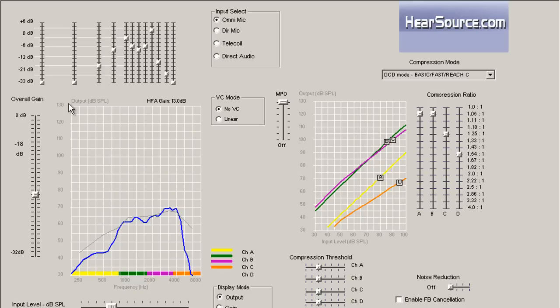We try to decipher what is a low frequency bass tone, what is a high frequency treble tone. Of course, we've got lots of frequencies to work with, so we kind of group them together. We consider anything from about 1000 Hz and below to be a lower tone.